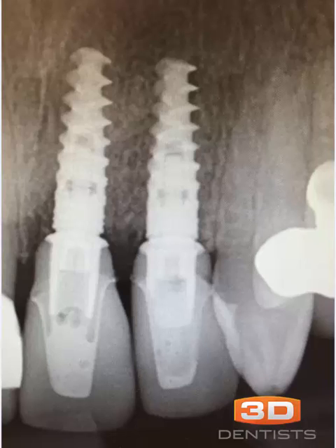Hello and welcome back. Today I wanted to take an opportunity to steal a case from online and walk through a couple of potential issues. One of the things we have to be careful of as digital dentists is understanding how digital dentistry is good for what we're doing, but also understanding when it can be not so good — meaning the limitations we may have with certain materials or components.